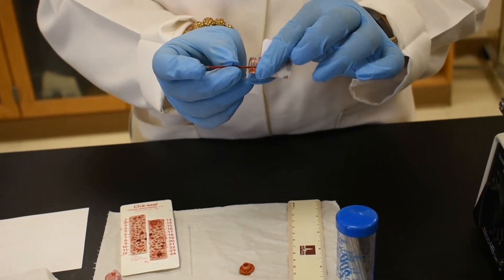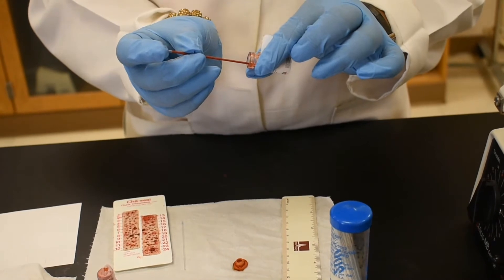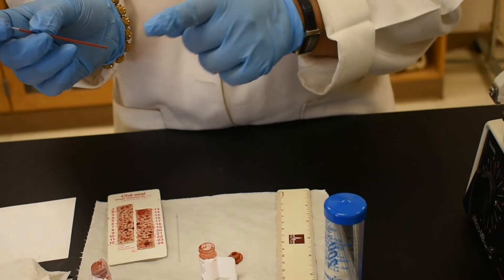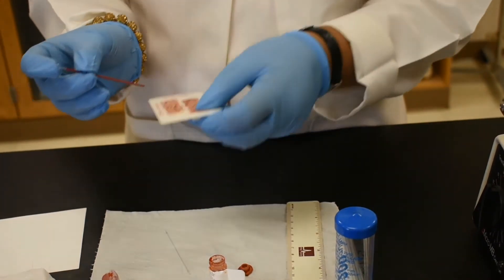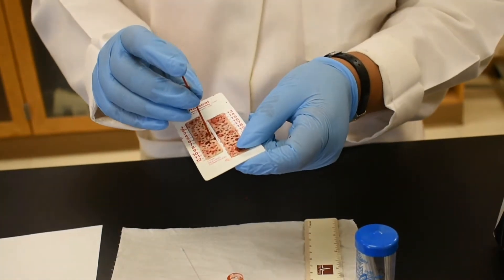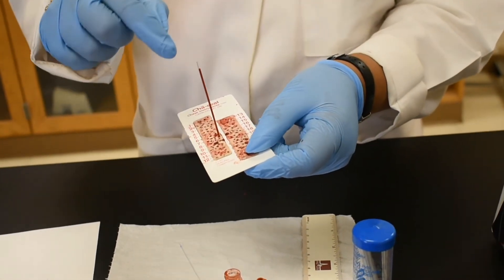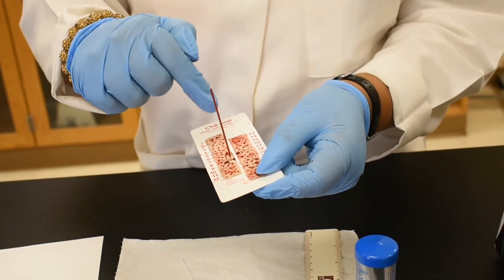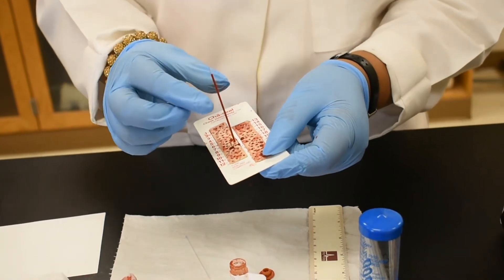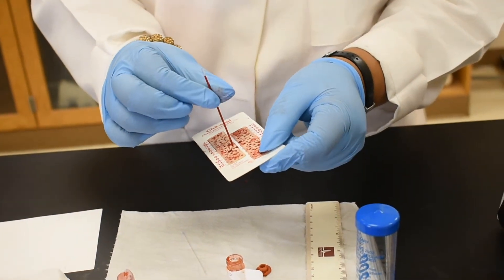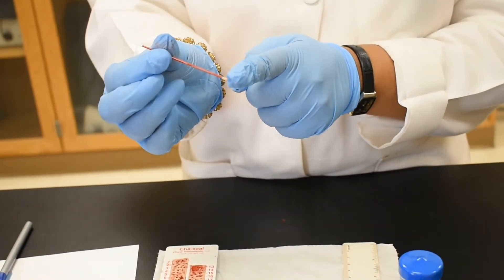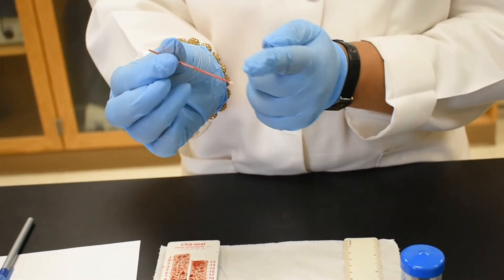And we will put our index finger in there. And now we will seal this end. When you are sealing, dig the tube up to that blue mark. Now you will understand what I mentioned before. So we are taking it out. You can clearly see on one side that white clay has sealed that side of the tube.